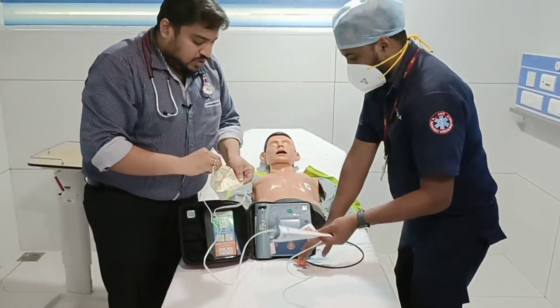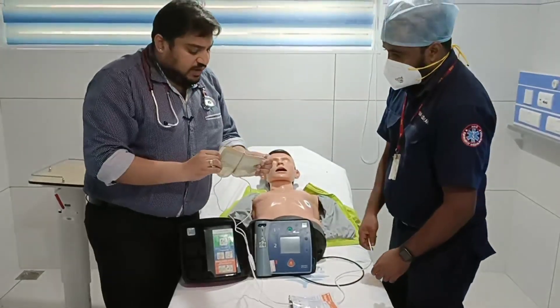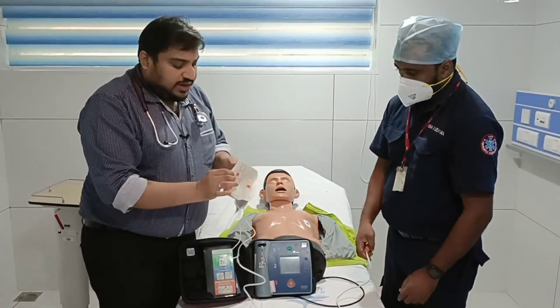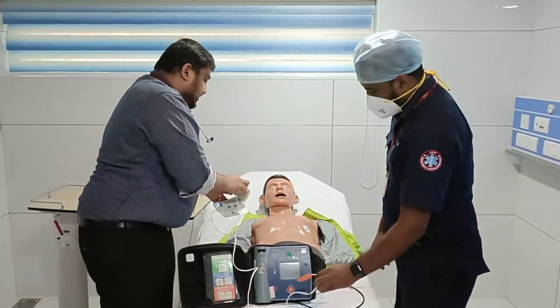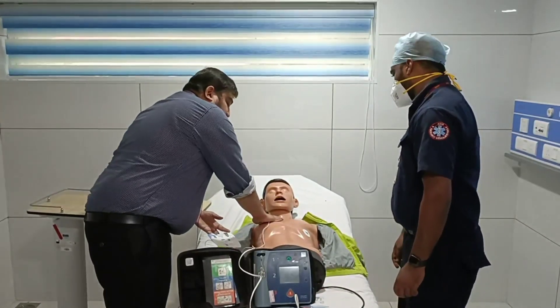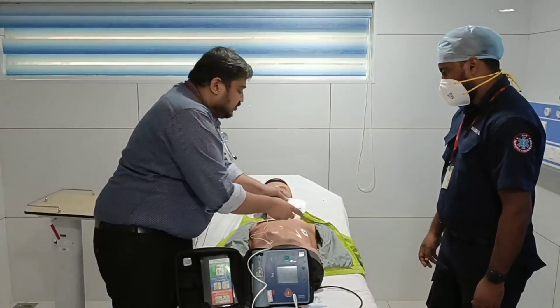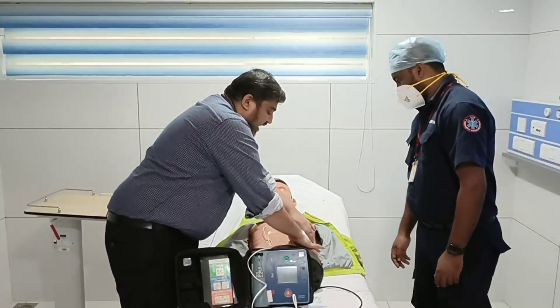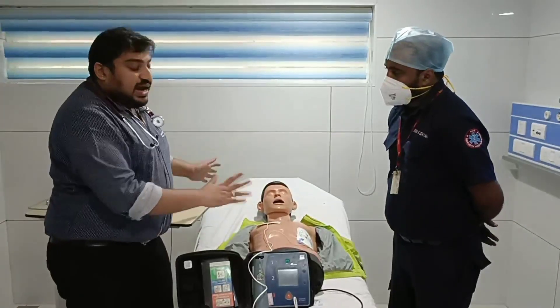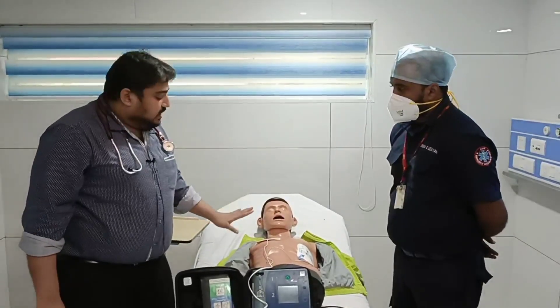The paddles you need to use here are adhesive paddles, as I showed in the last video. They will be available with the AED. You need to apply one over the right side of the chest and the other one over the left side. That is how the paddle connection works, and it is the same for defibrillator purpose as well.